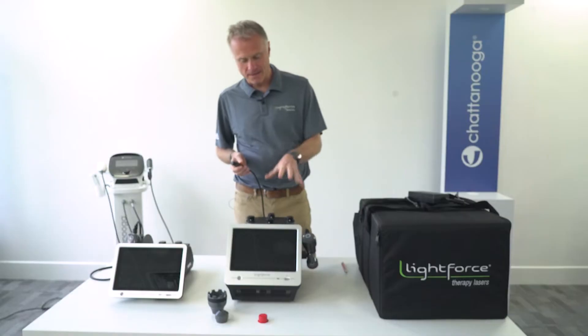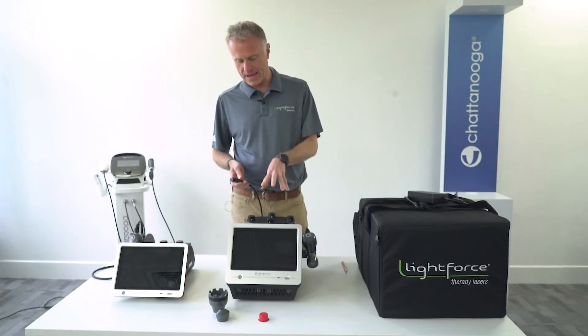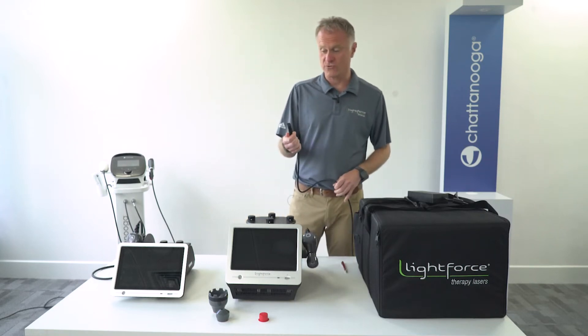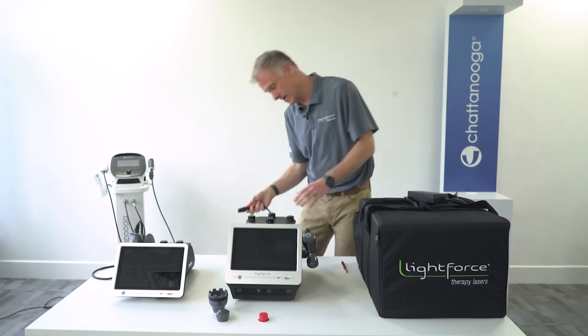In terms of power, the XPI and the XLI models both have internal power supplies, so all that's required is the insertion of a UK mains cable into the back of the device.